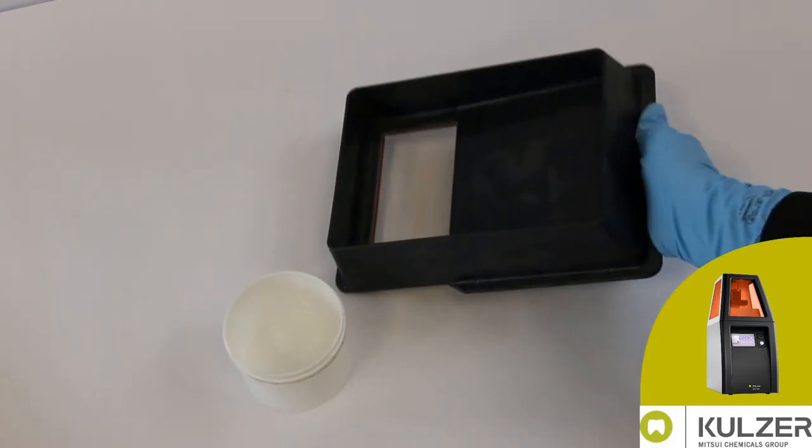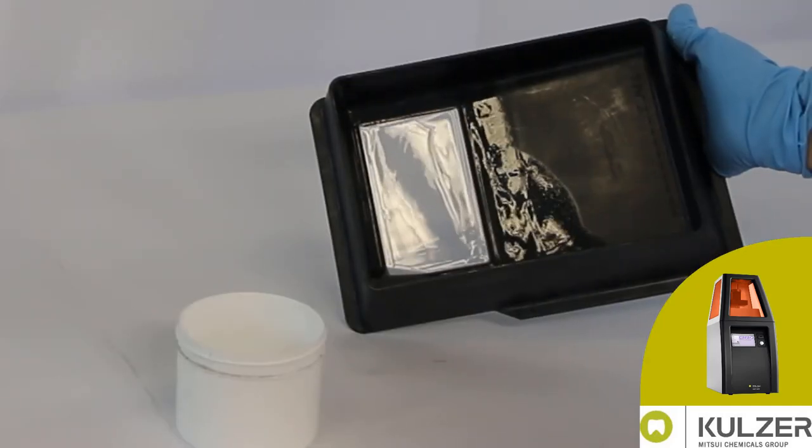Make sure that the material film starts to tear at the upper right edge and pulls off to the bottom left.